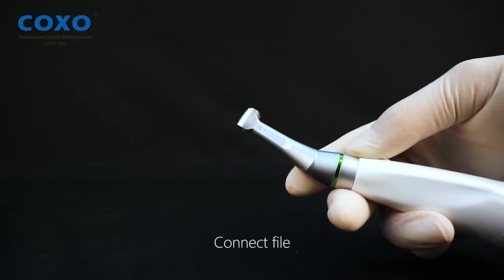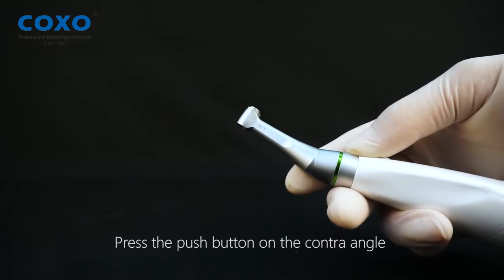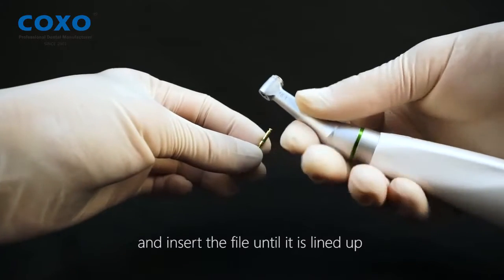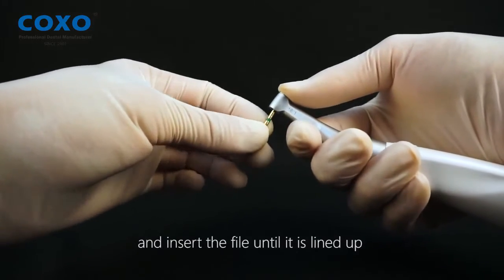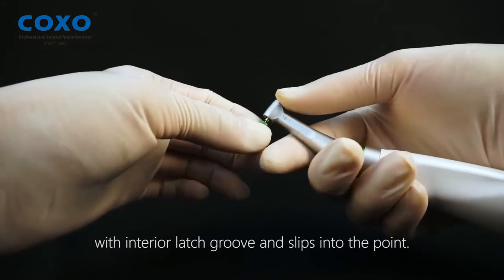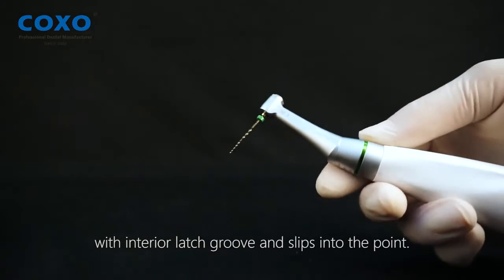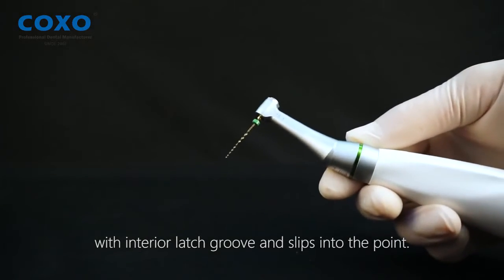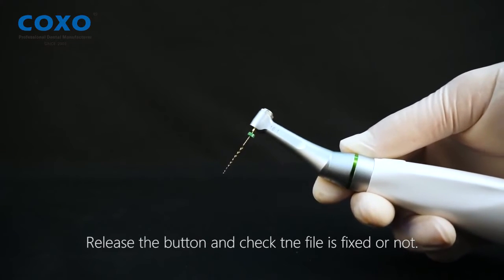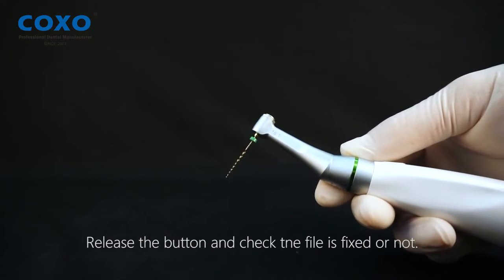Connect file. Press the push button on the contra-angle and insert the file until it is lined up with the interior latch groove and snaps into position. Release the button and check that the file is fixed securely.